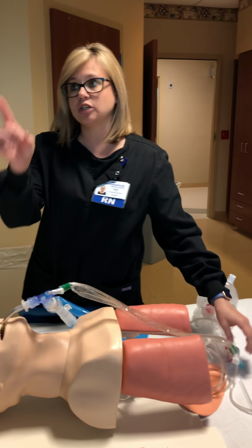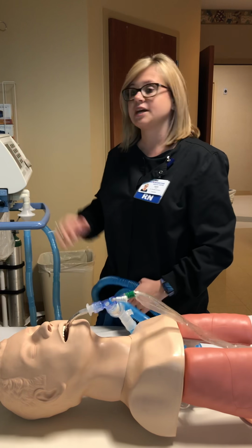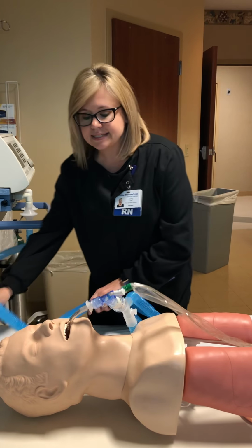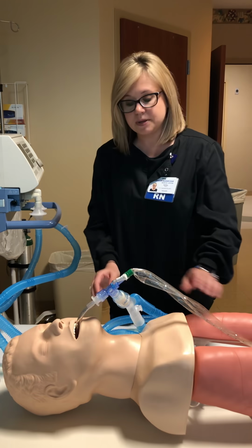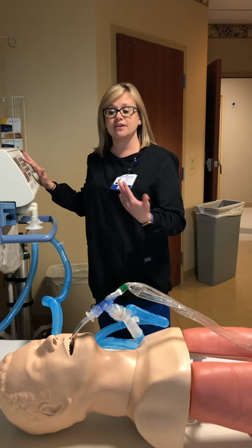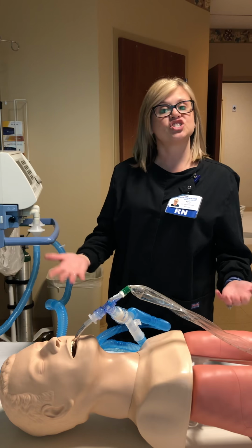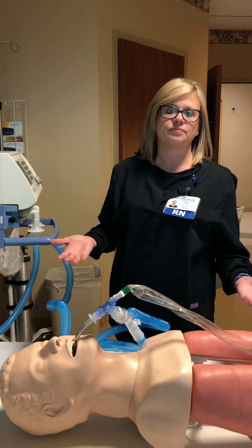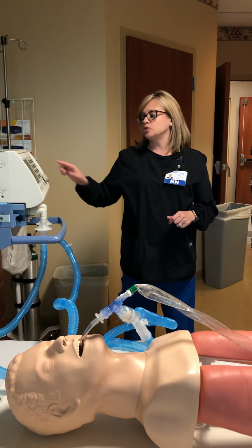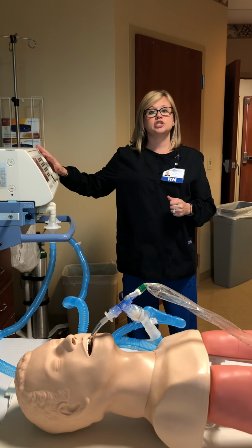And then once again, look at your oxygen level and give another O2 or 100% FiO2 if need be, okay? Like I said, these patients could be really sick and they may already be on a high level of FiO2. And after you suction them, they do not recover and their sat stays 75, 80. Respiratory may be aware and they may ask you to turn up the FiO2 setting. This is one button that you can touch on the ventilator.